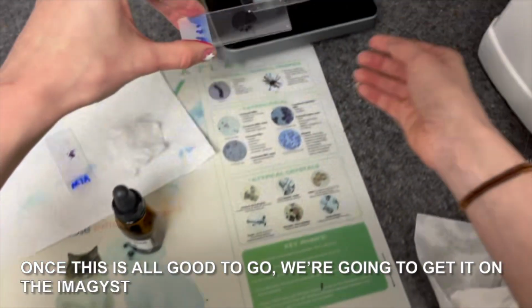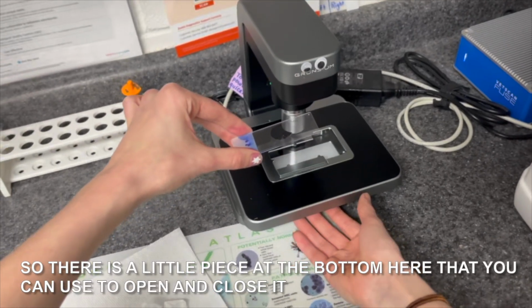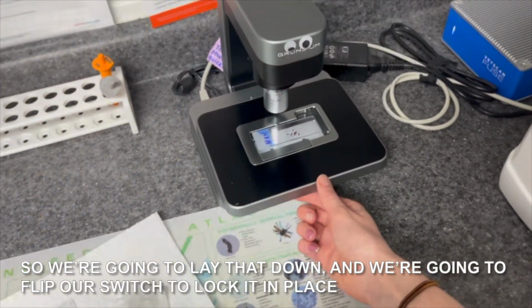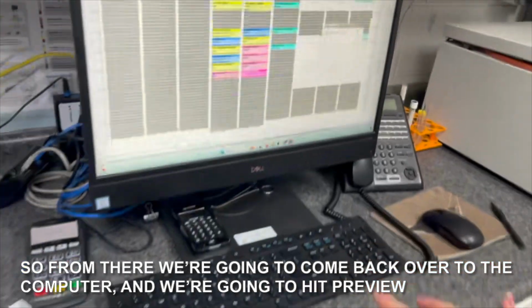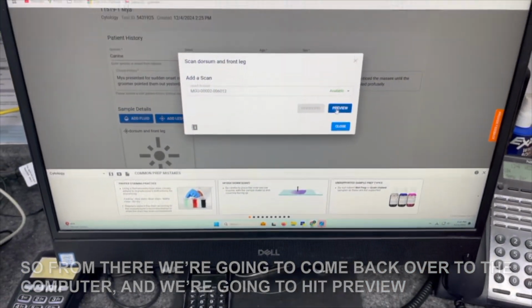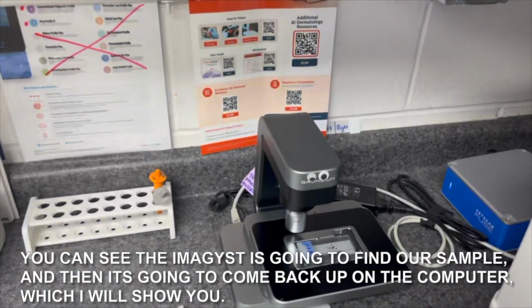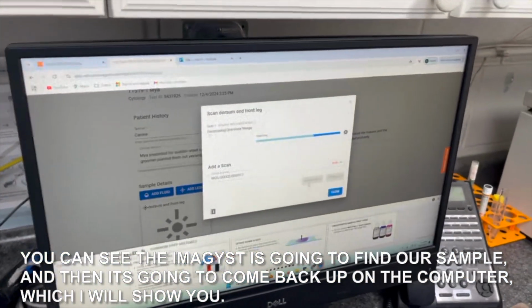Once this is all good to go, we're gonna get it on the Imagyst. So there is a little piece at the bottom here that you can use to open and close it. So we're gonna lay that down, and we're gonna flip our switch to lock it in place. Okay, so from there we're gonna come back over to the computer, and we're gonna hit preview. You can see the Imagyst is going to find our sample, and then it's going to come back up on the computer, which I will show you.